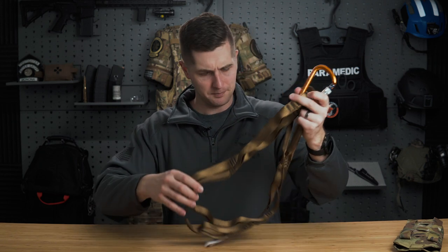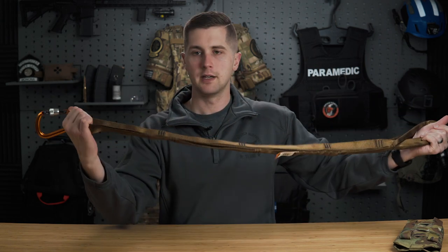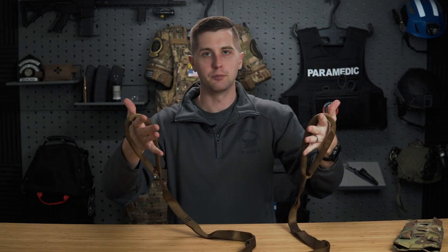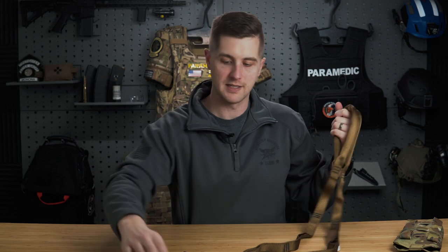The system is scalable. At its simplest, you put the strap under each shoulder of somebody on the ground — doesn't matter if they're in an SCBA, civilian clothes, or armor. You loop it over their chest or under their back, thread the loops between their arms, and do a simple drag to pull both loops and move them away from danger, off the X, away from the firefight.